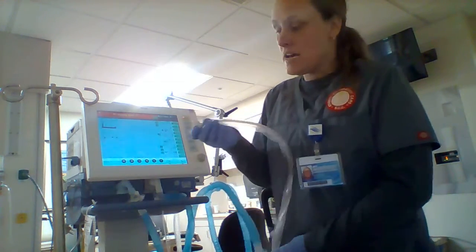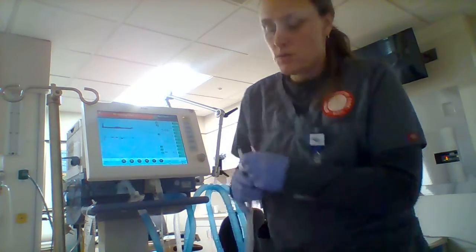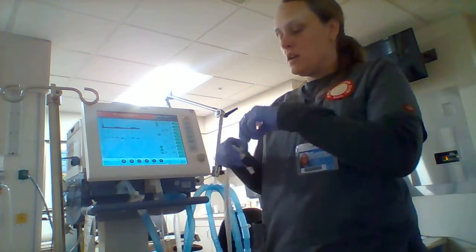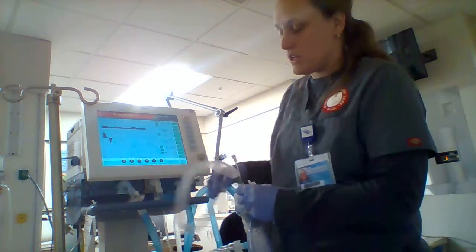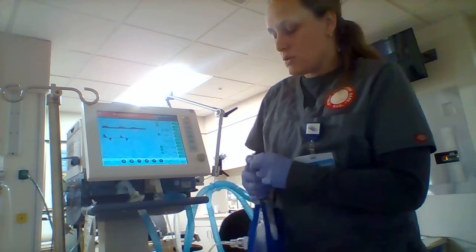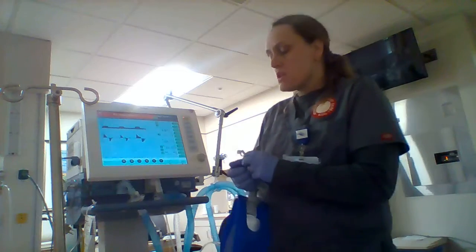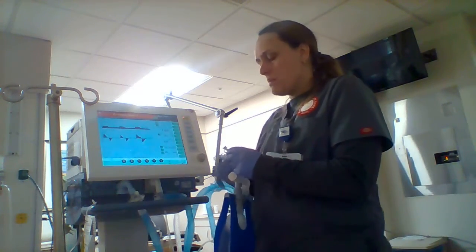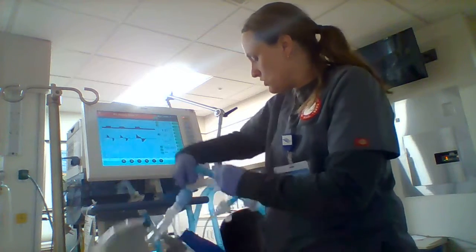Let's say I need to clean that. I would squirt just a little bit in here and then use the suction to suction that out to clean the suction tubing. I can also, because I get saline all over me, squirt some in here to lavage the patient. I'm not going to do that with a test lung. That's just wrong. Maybe 1 or 2 cc's and just suction that out to help break up the secretions.